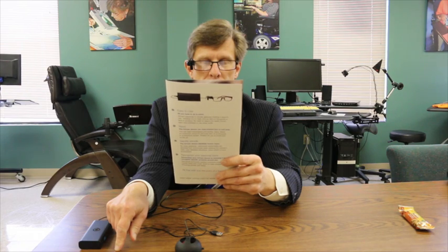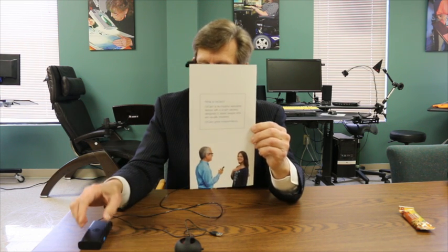In addition to that, instead of just taking an image by using this trigger button right here, you can have the camera take an image by using a pointing gesture — an upward pointing finger gesture, like this. [Device reads]: "What is OrCam? OrCam is an intuitive wearable device with a smart camera designed to assist people who are visually impaired. OrCam gives independence."